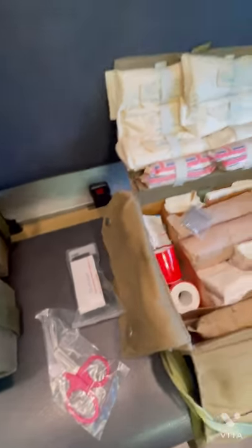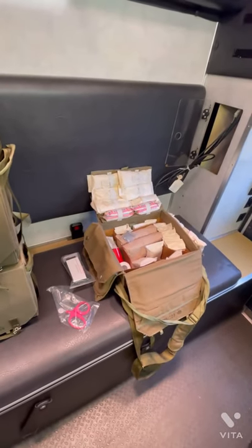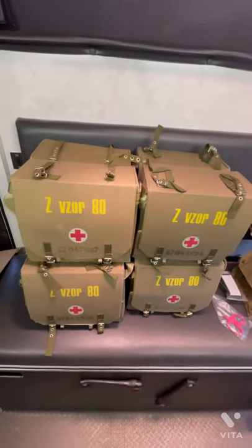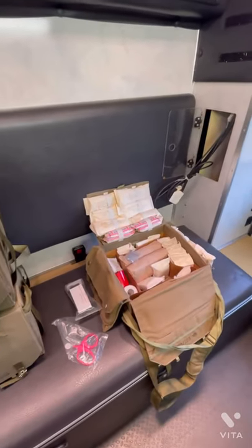It's a copy of a CAT. So if you guys want one of these — two, however many — great to throw in the vehicle and go. We'll have them listed up on the website, which is ozarksurvivalsupply.net. Check us out, let us know what you think, and happy holidays.